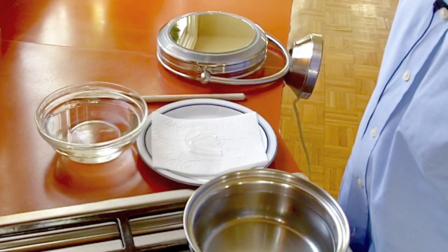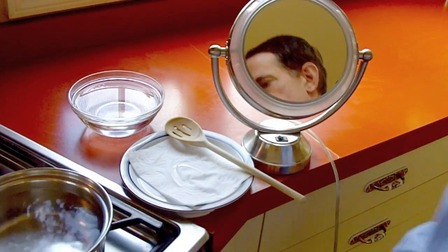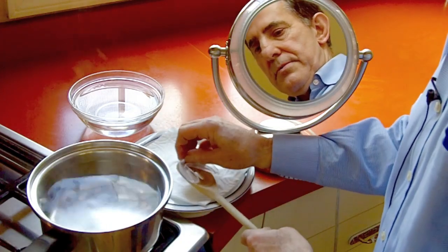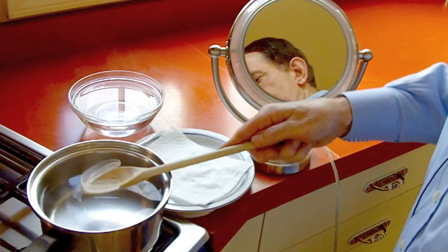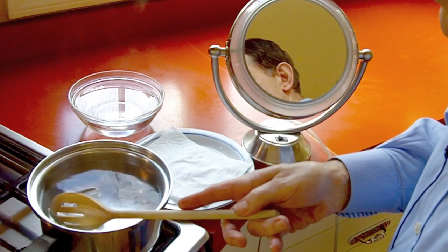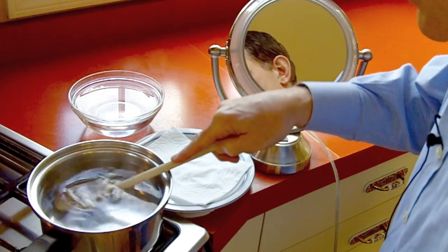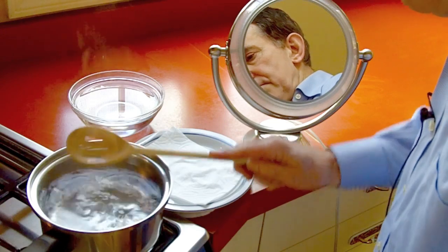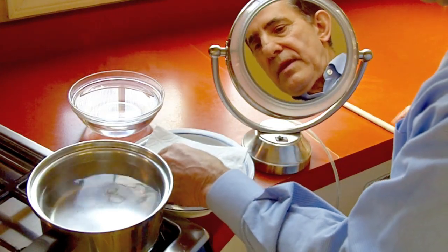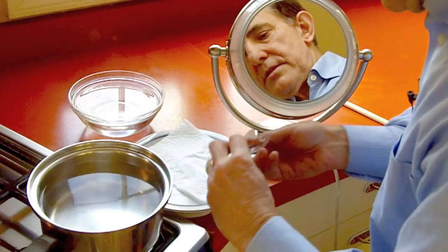Okay, the water is boiling so we will remove it from the burner. We put the mouth guard on the slotted wooden spoon and put it in the pan. Try to keep it centered in the pan so it doesn't touch the edges. The walls are starting to curl now — give it a second more. Now we will remove it; the walls are curled in. Now we will set it on the paper towel and slightly move the walls apart. Go ahead and place it on the teeth.